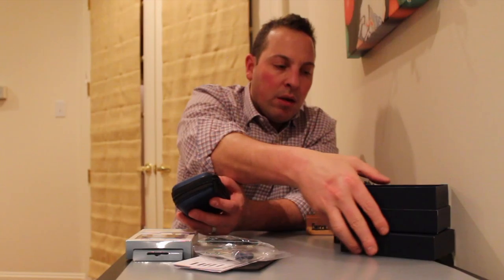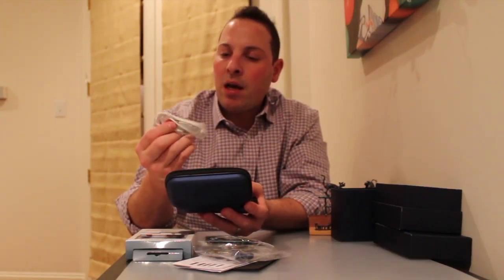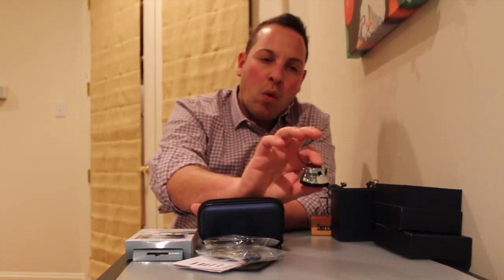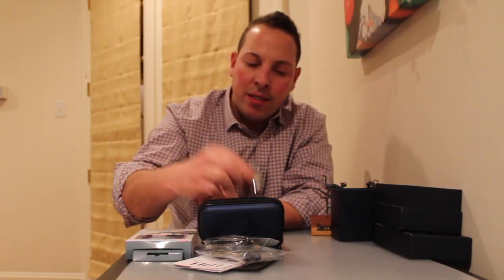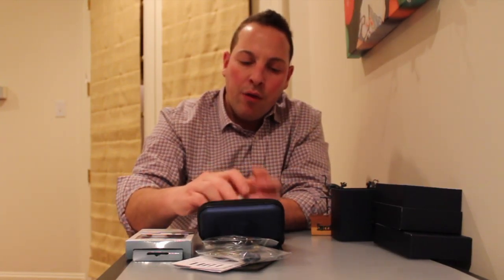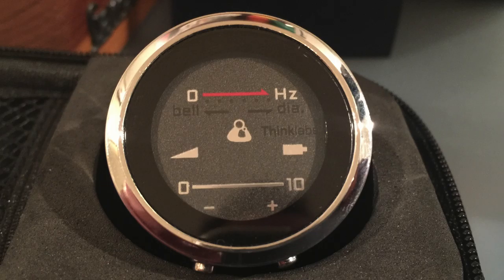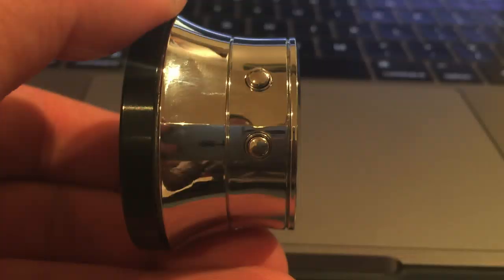And now we get to the actual stethoscope itself. Here's the case — very nice. Inside it comes with one side that is a USB adapter and the other side that looks like a headphone jack. One side of the stethoscope does have what looks like a headphone jack interface, and that is probably for charging. Here is the wall charger — one side of the USB attaches to the wall charger, the other side to the stethoscope itself. The diaphragm says ThinkLabs right on the front, and the other side has a hertz and volume monitor with a couple of different buttons around the stethoscope that you can depress.